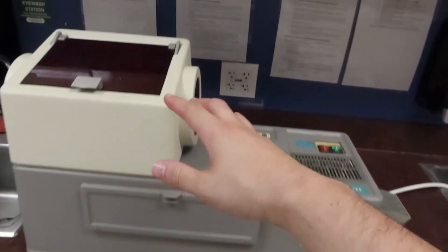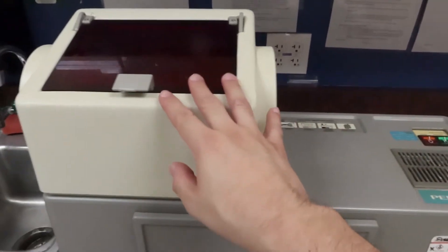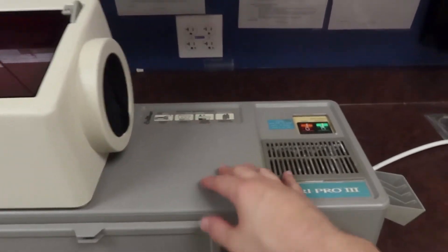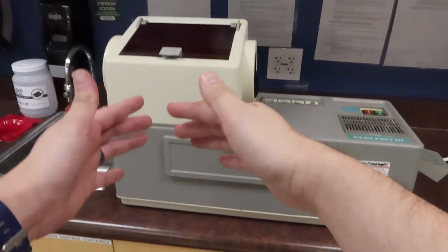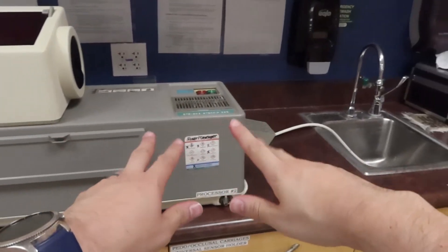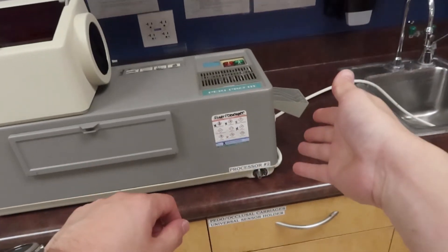Let's go ahead and take a little bit of travel back in time and talk about our actual developer unit. This is an automatic developer, so if I go and put some undeveloped x-rays in here, it'll go through the process and get developed, then it'll pop out over here in this little tray.